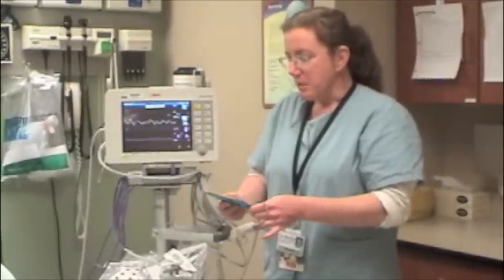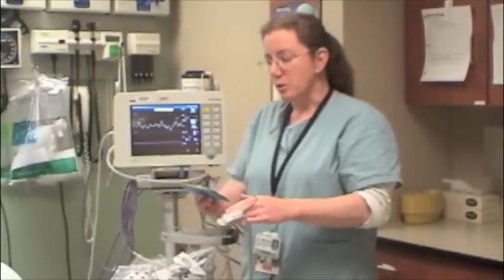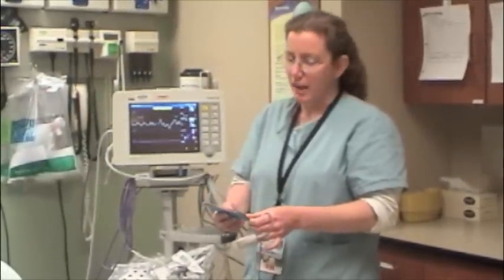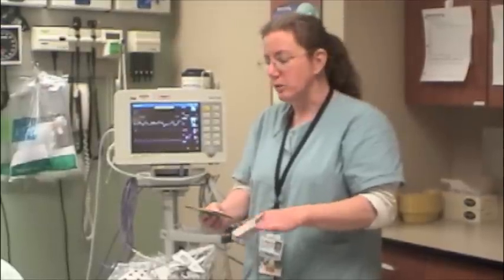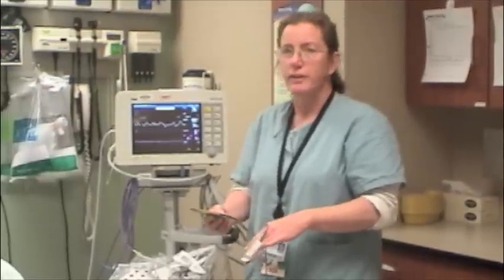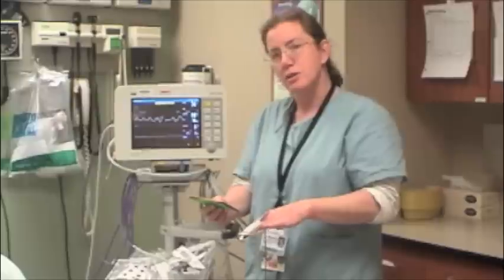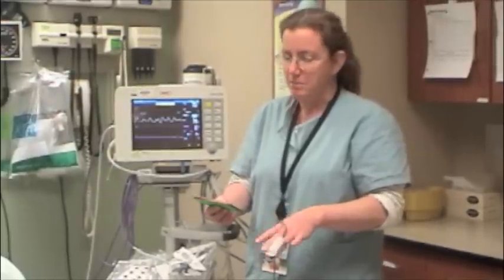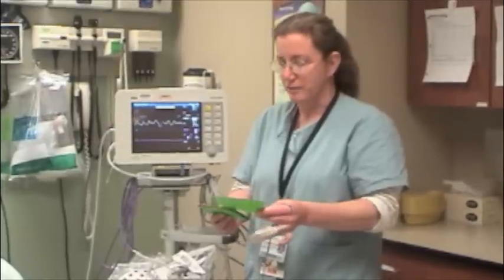Capnography measures ventilation, which is the end-tidal CO2 in millimeters of mercury from a patient's exhaled breaths. The normal value is 35 to 45 millimeters of mercury, and that's the same partial pressure of CO2 that you'll read on an ABG, but there it's read as PaCO2.